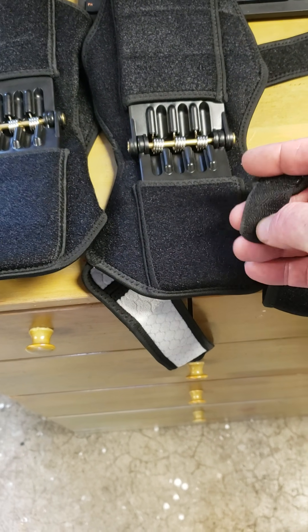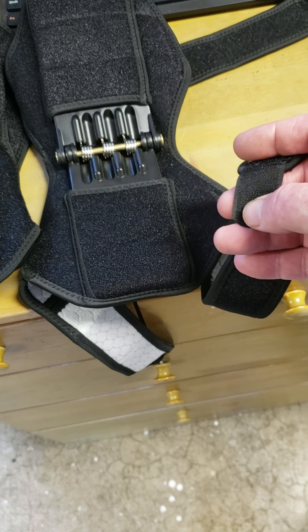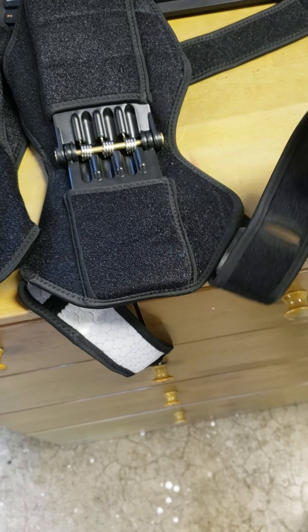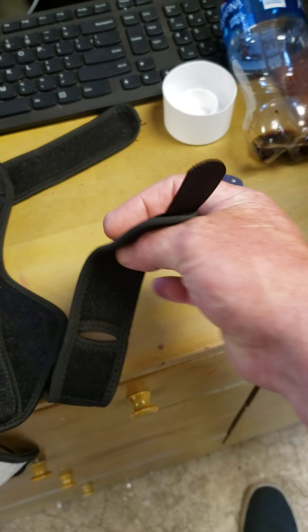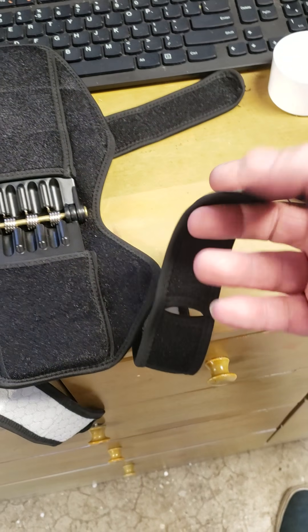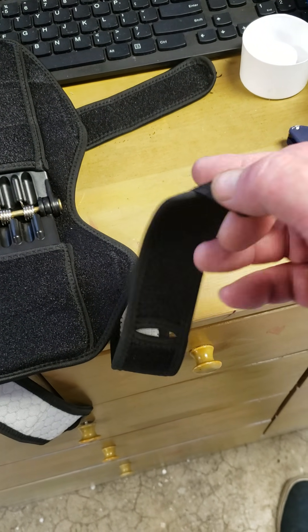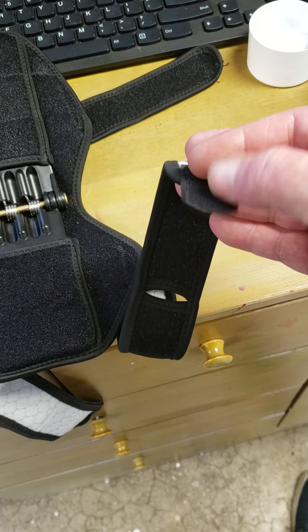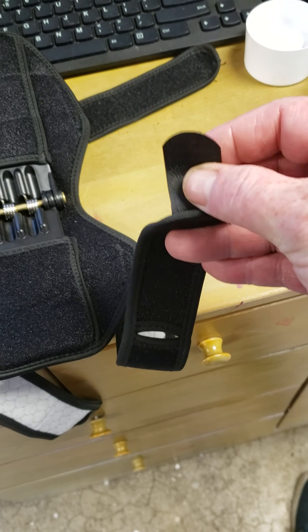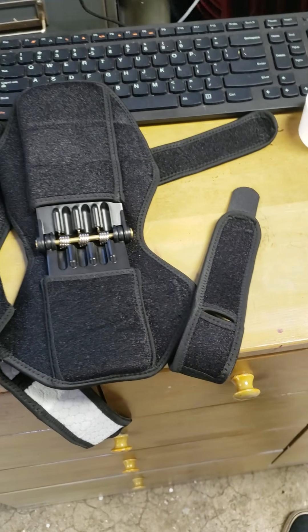And I can see where, if you use that a few times — anybody that's familiar with Velcro knows it doesn't last forever. But this whole thing here should be the really stiff, plasticky type Velcro. This is like the real cheap stuff that you get on crappy little kid toys. It's not that really stiff, thick, bristled Velcro.